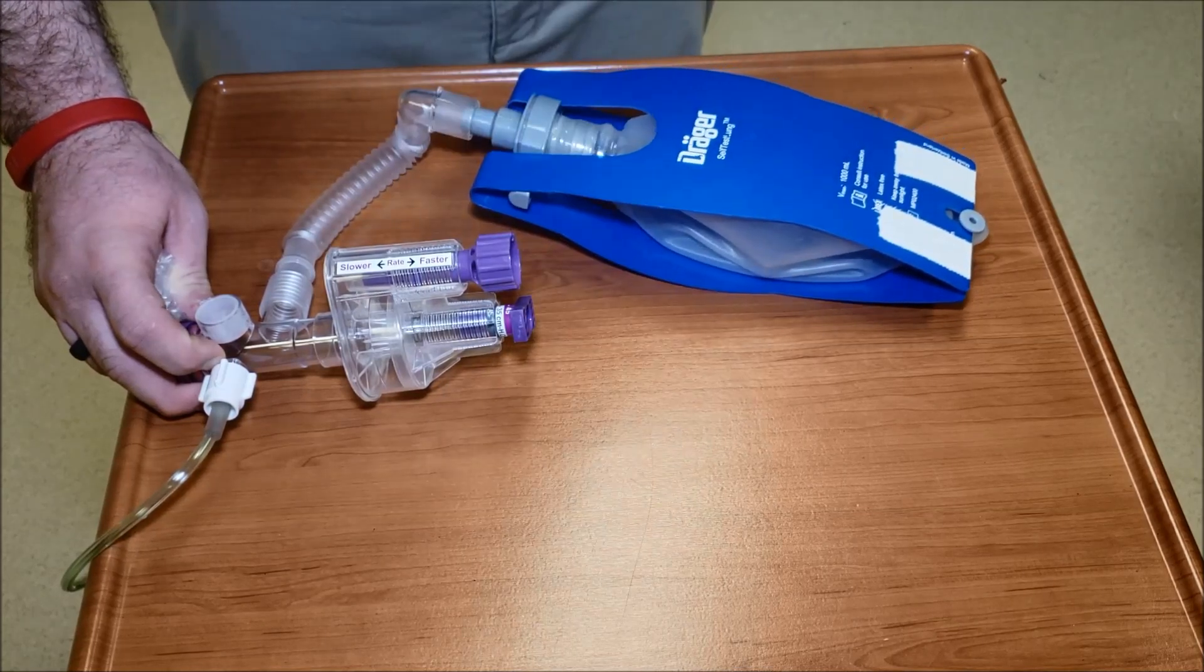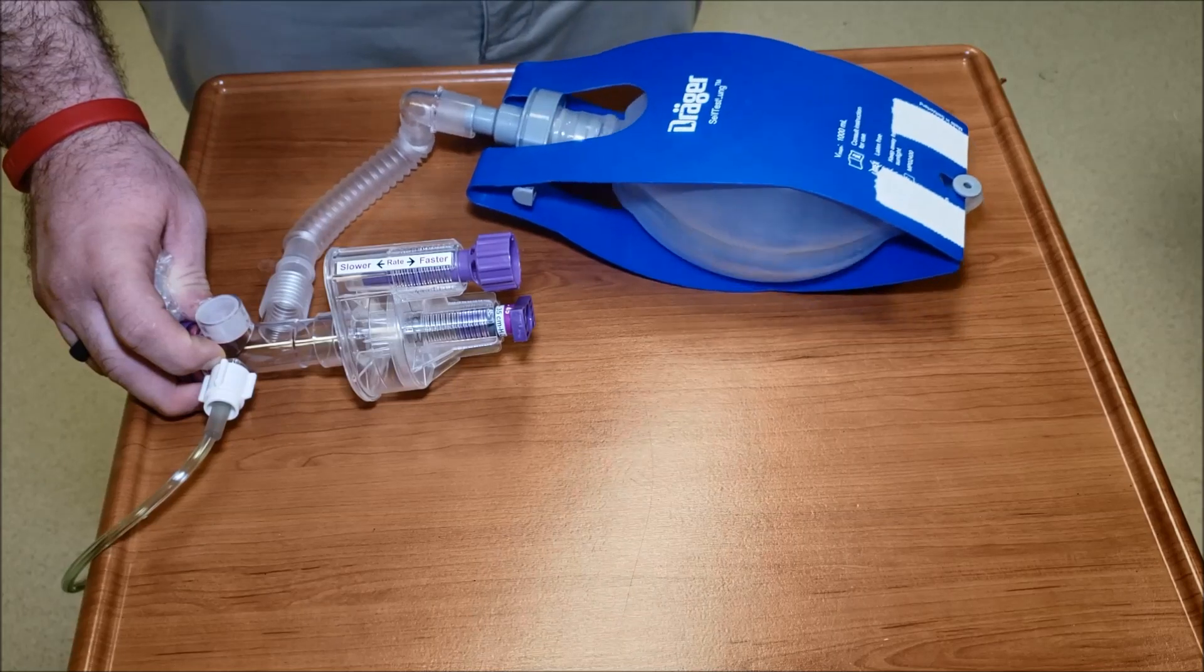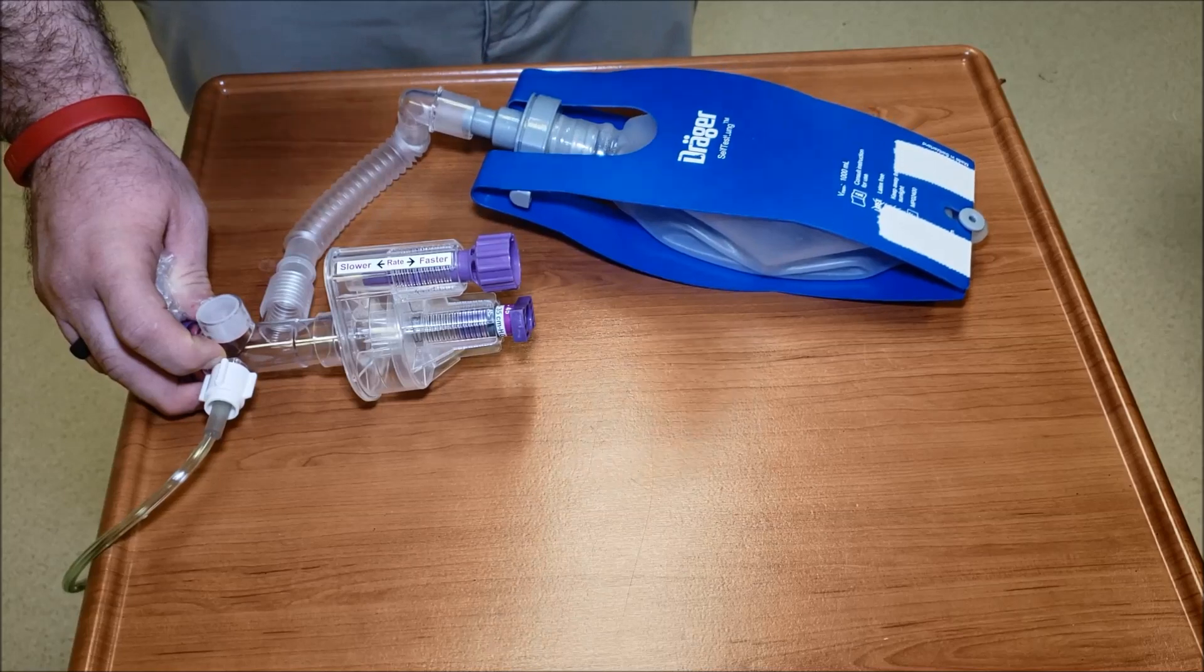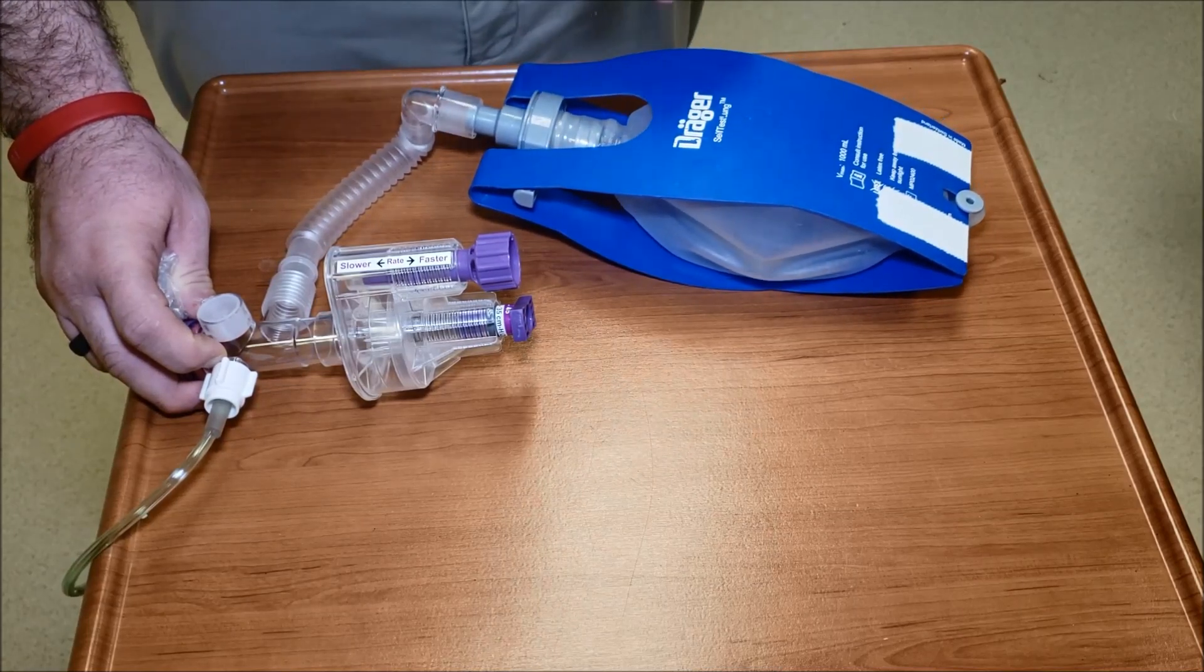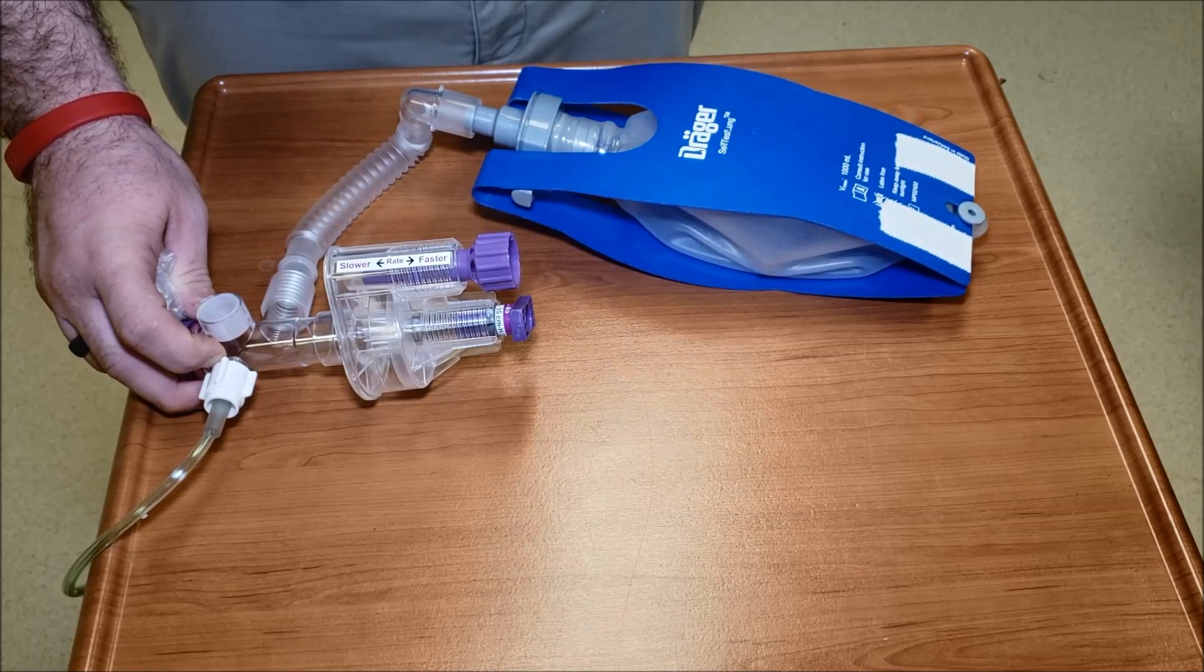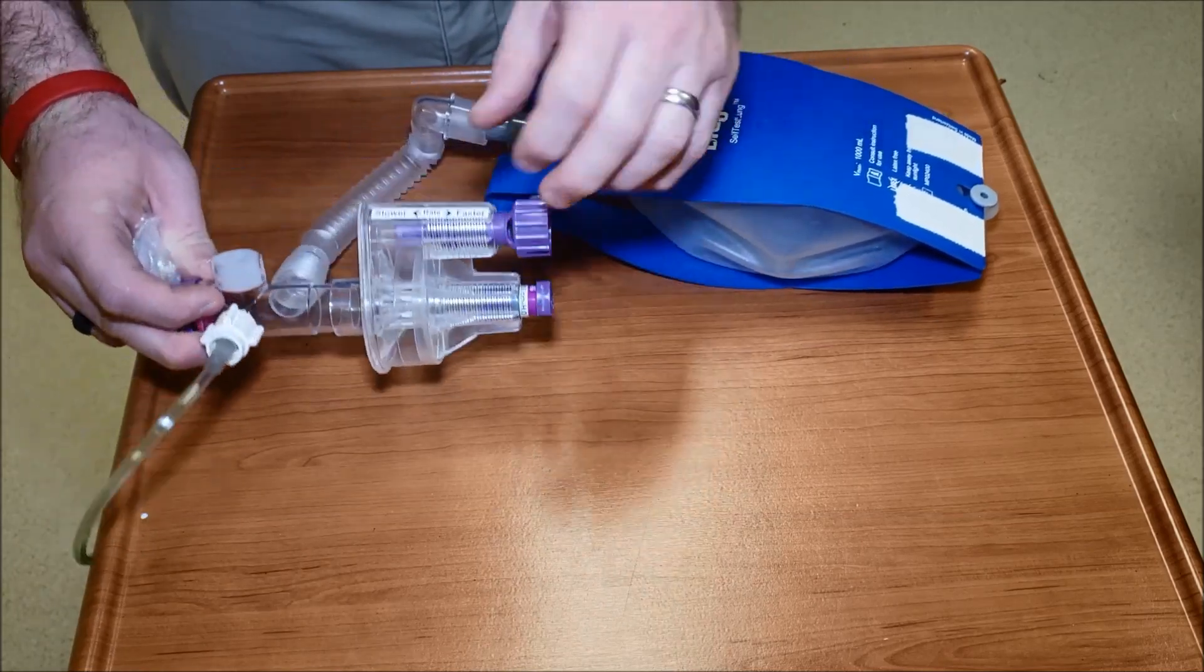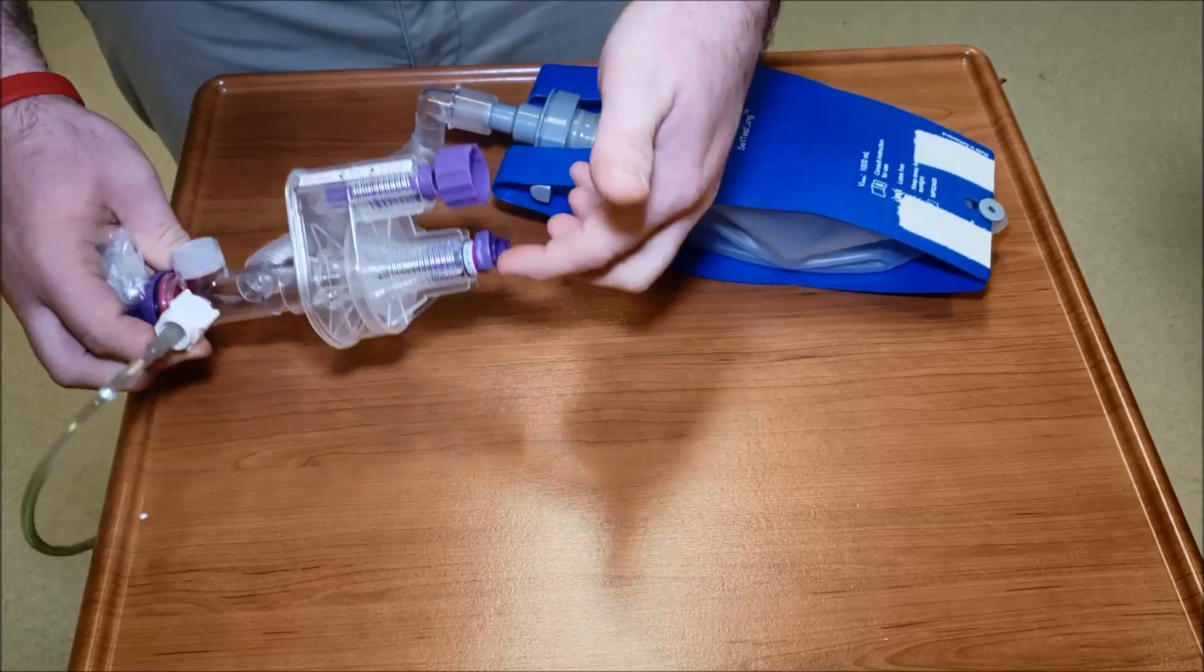Two thousand, three thousand, four thousand, five. Between five and six seconds would be ideal and you can see how I'm adjusting this now after this is fluctuating well.